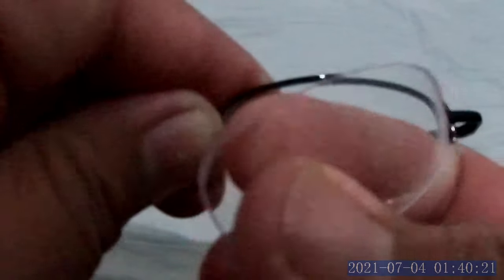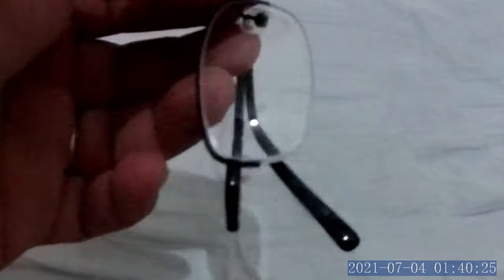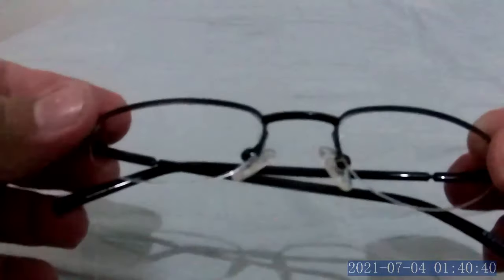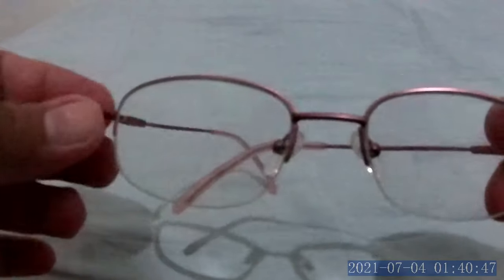Pull down and push out — see my finger — you need to pull down and push out like that. Then for the second one, again hold tight on the nose bridge, pull down, and pop out the lens. That's one way to remove the lens on a semi-rim frame.